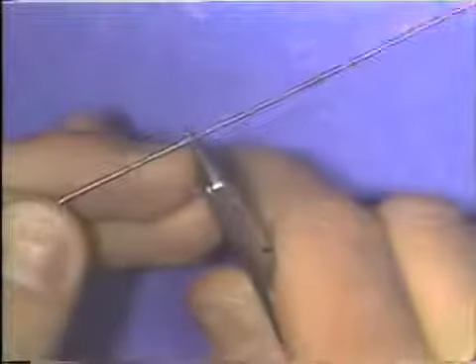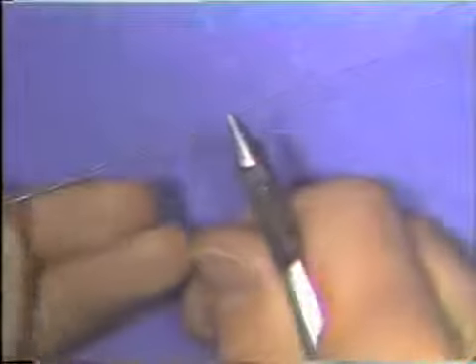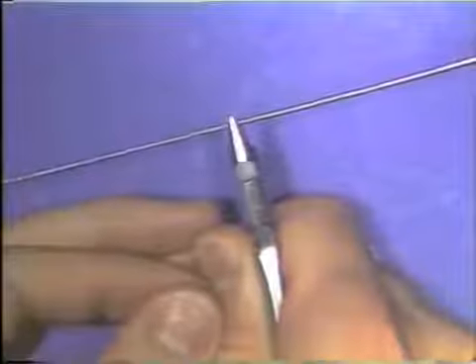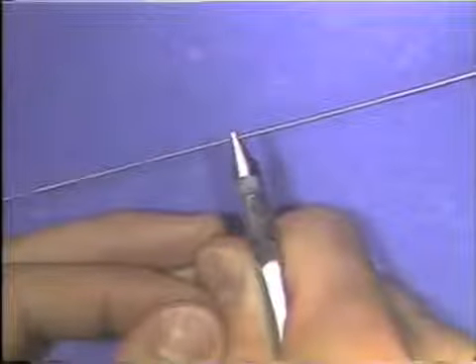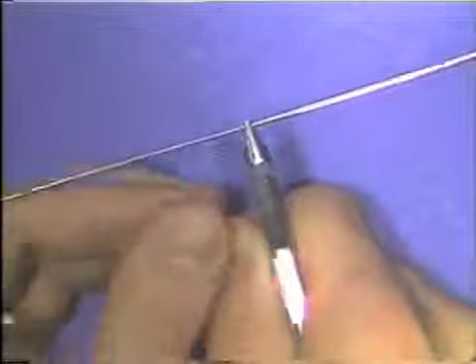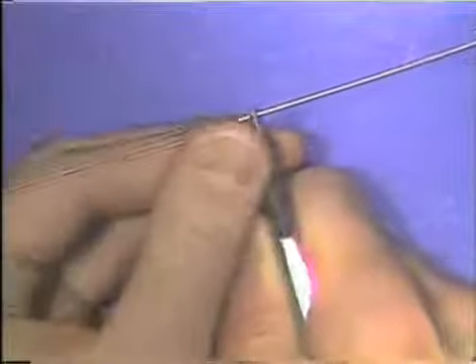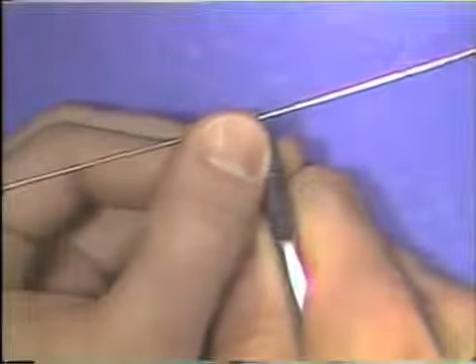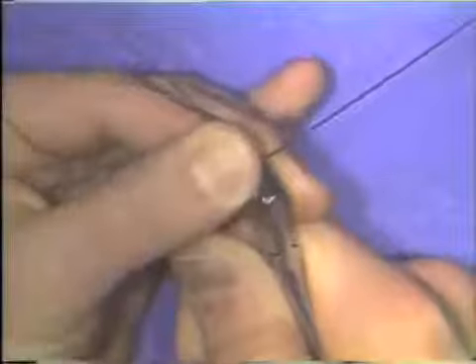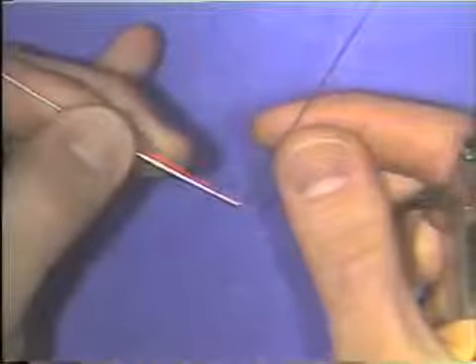You also must be sure that the wire is at 90 degrees to the long axis of the beaks of the plier. In wire bending, the pliers serve as a vise to hold the wire. The actual bending is done with the thumb and fingers of the opposite hand. To make a bend, the thumb is placed as close to the beaks of the plier as possible, and the wire is pushed over the round beak of the plier. The result is a right angle bend.